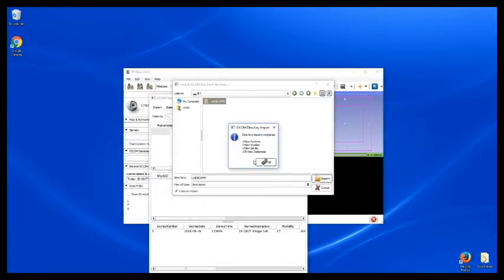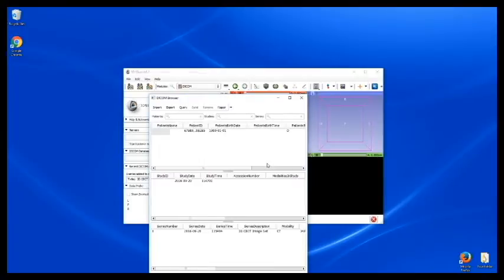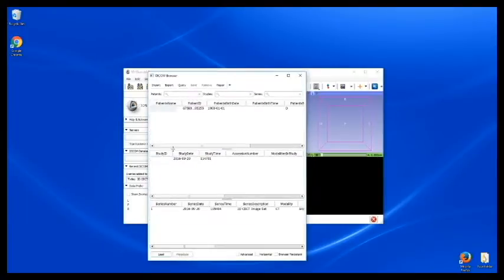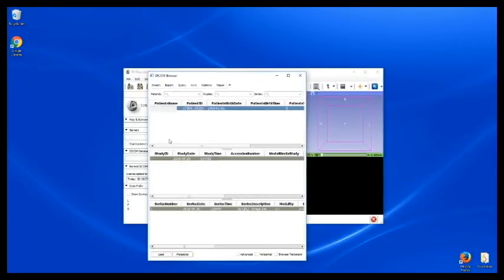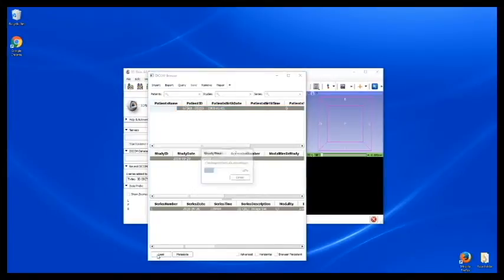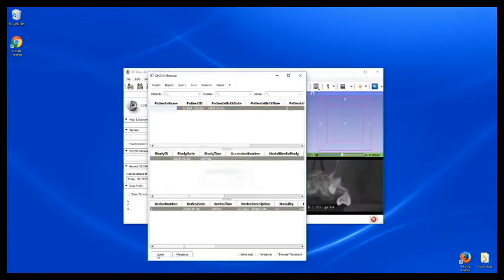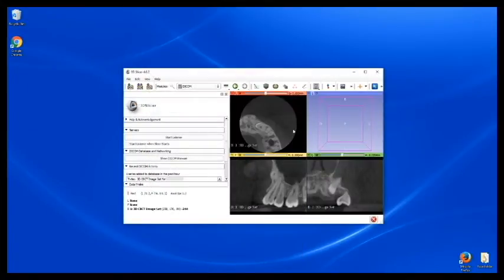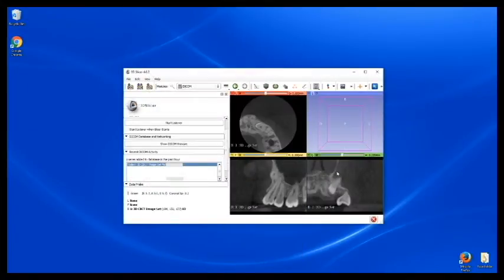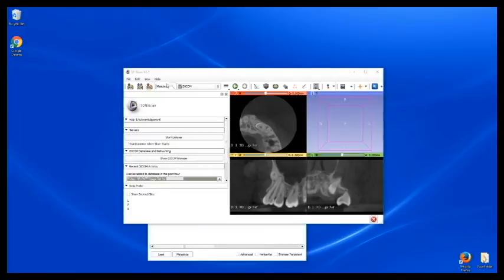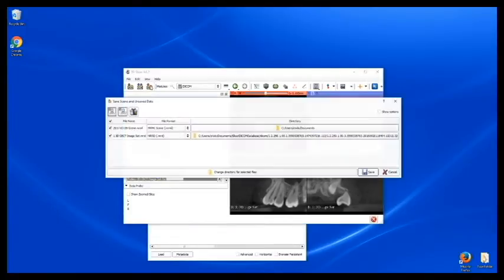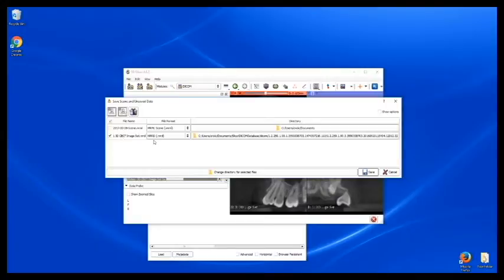Our upload is complete. I will choose OK and select it, and now I'll load it from the DICOM browser to the new window in 3D Slicer to then save, and we want the NRRD file here. Make sure this one is selected.